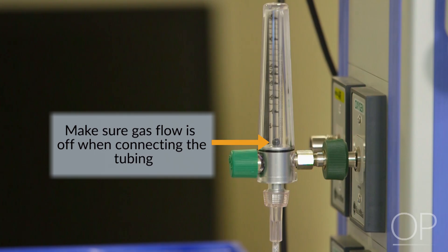But importantly, make sure that the gas flow is not running when you connect it. You should wait until the setup is complete and the device is adequately affixed to the child before you start the gas flow. This will minimize the amount of wasted drug and maximize the received dose.